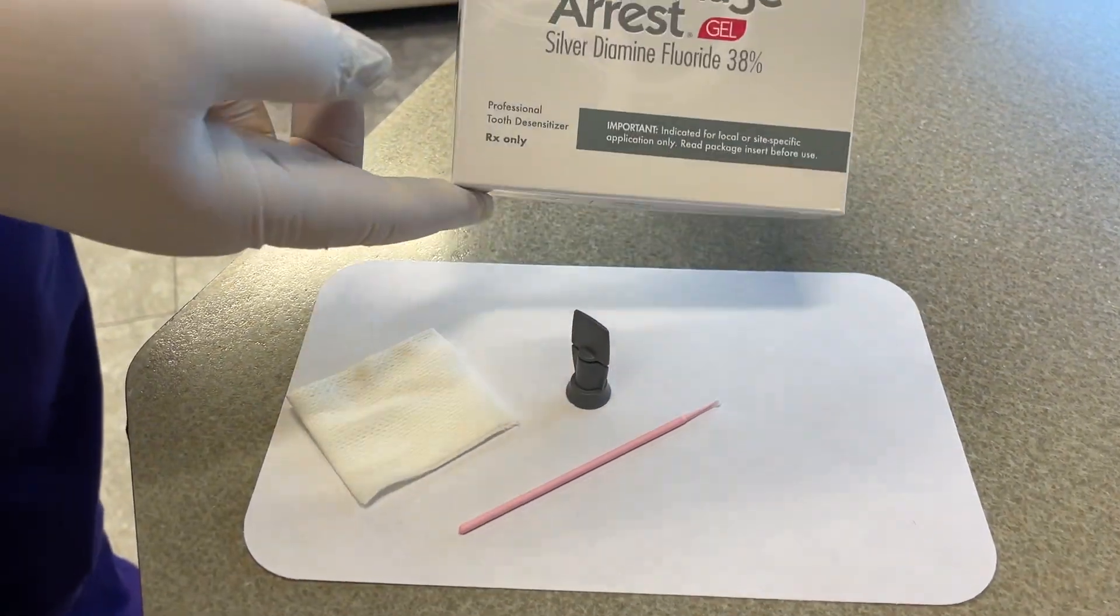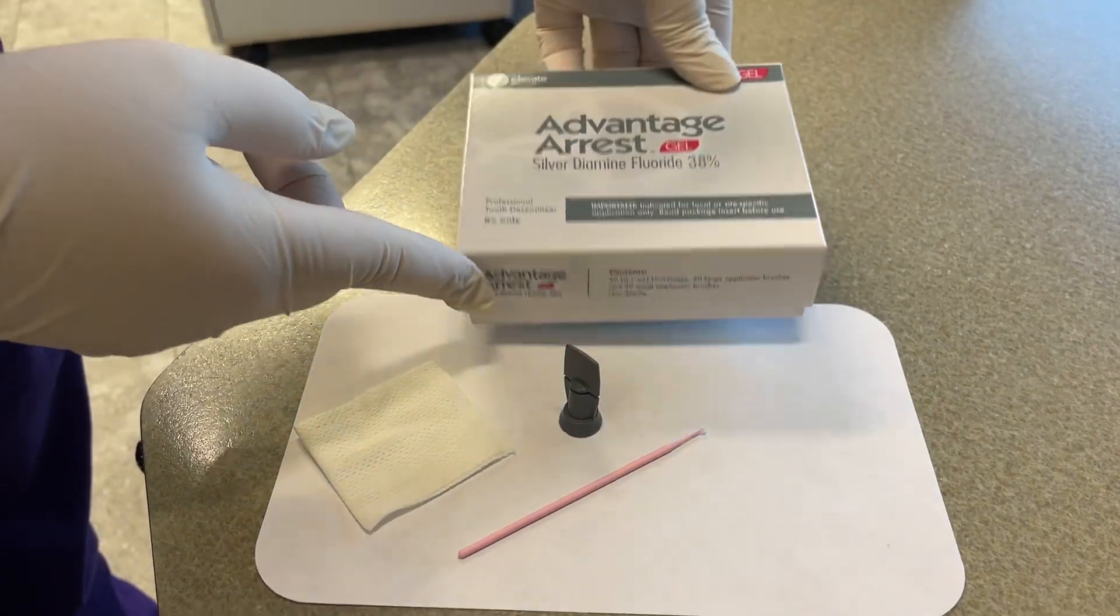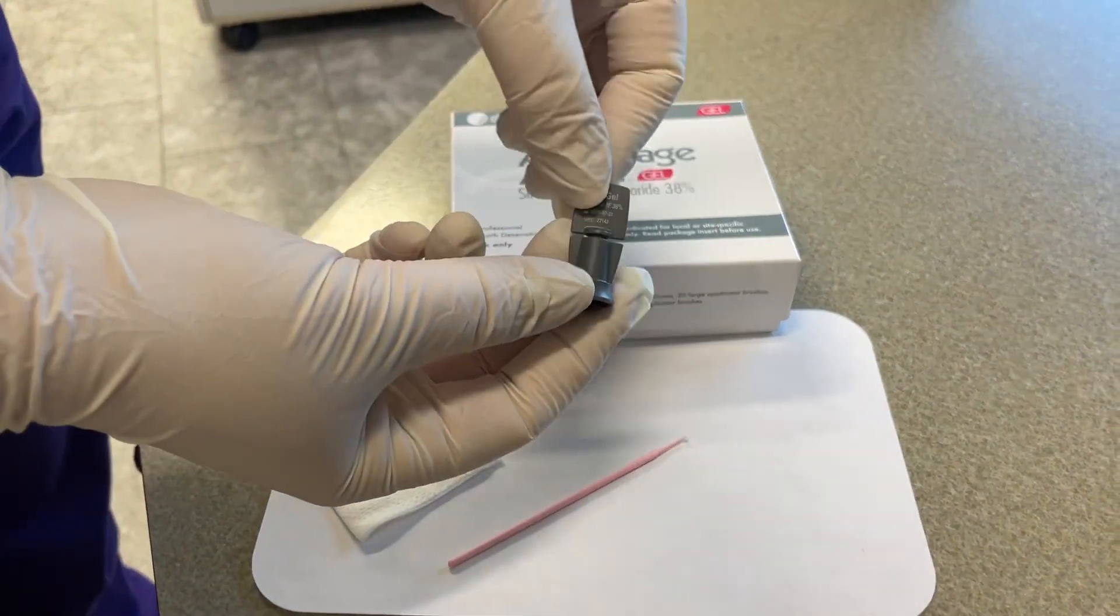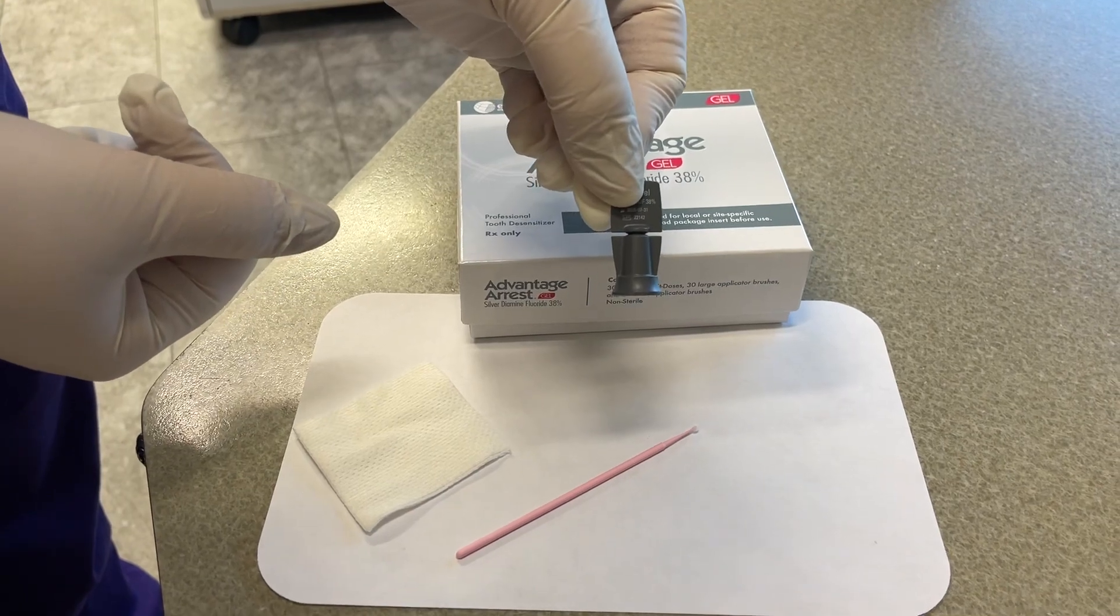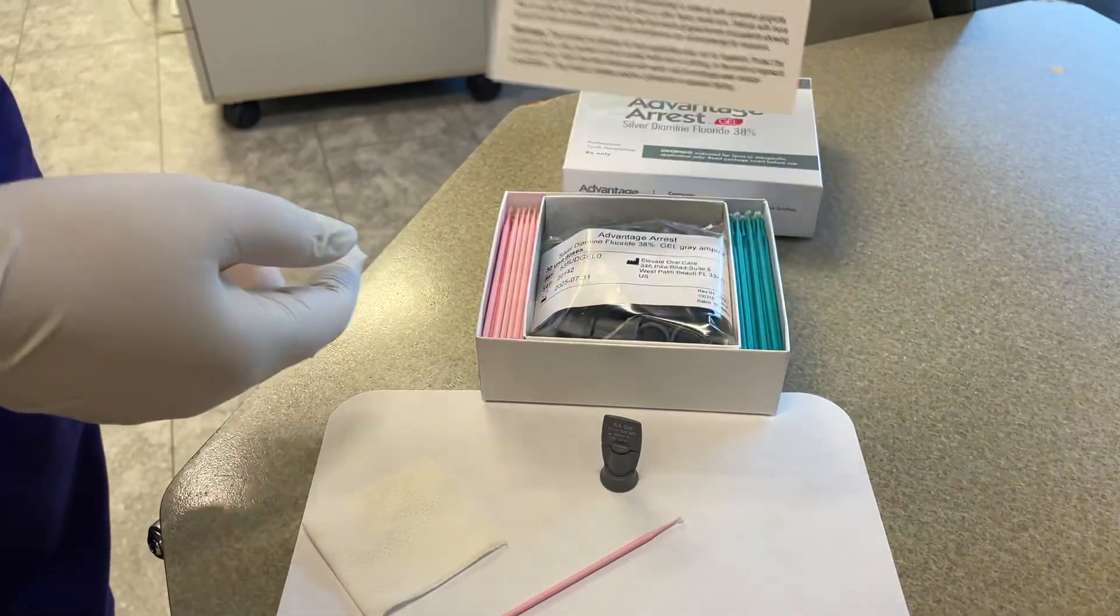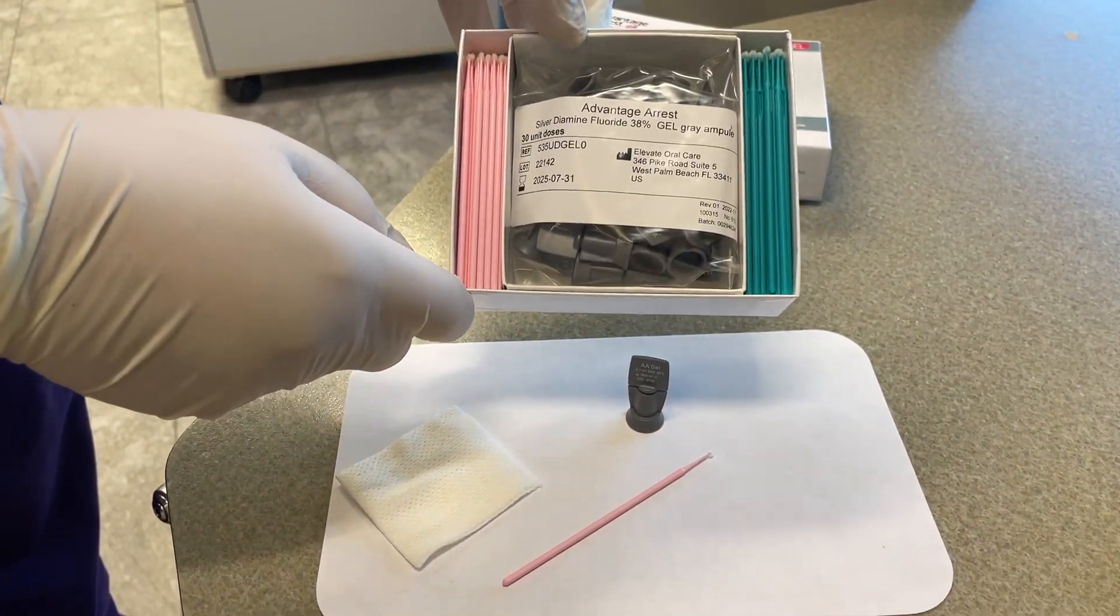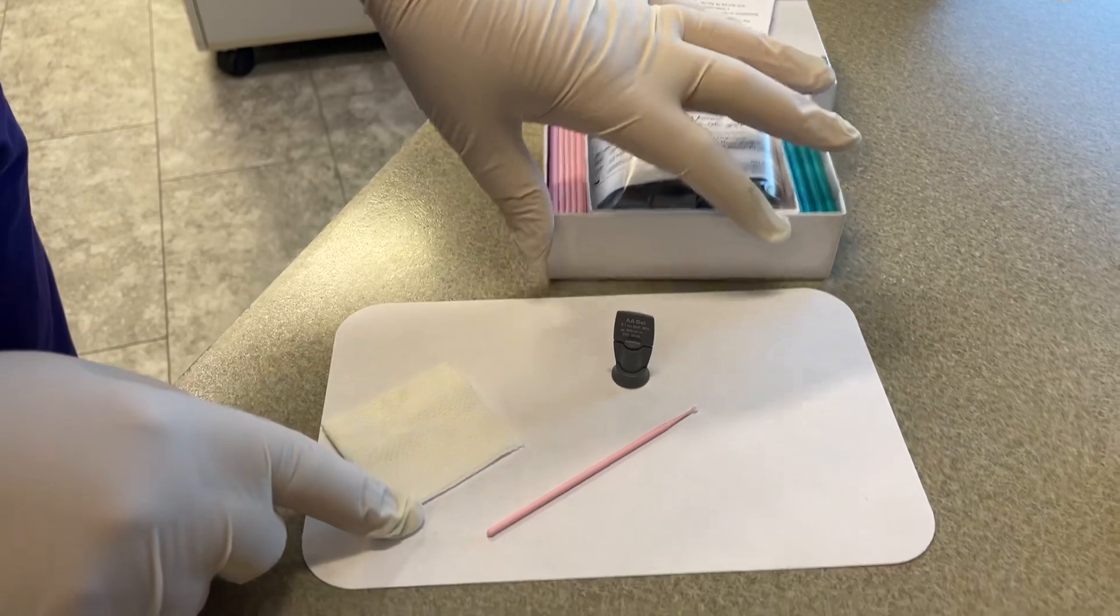This is the new Advantage Arrest gel formulation - pretty cool idea. Just got it today. It comes in little unit dose ampules. You can see in here two different sizes of brushes.